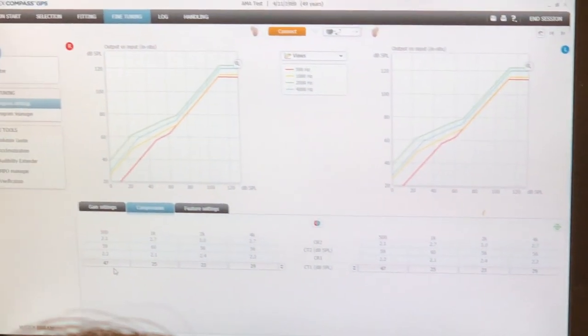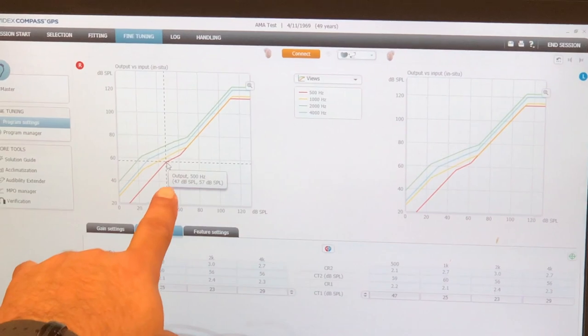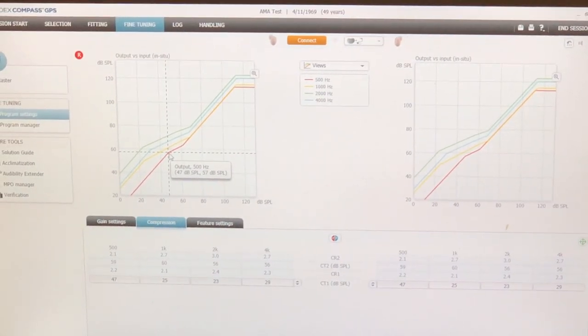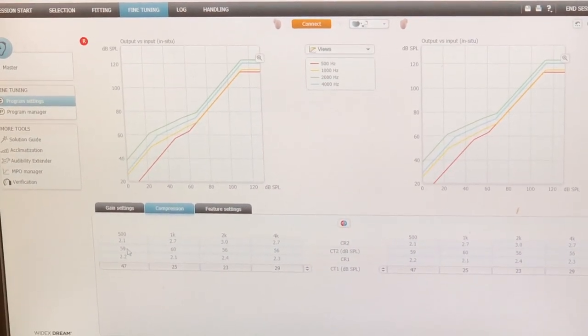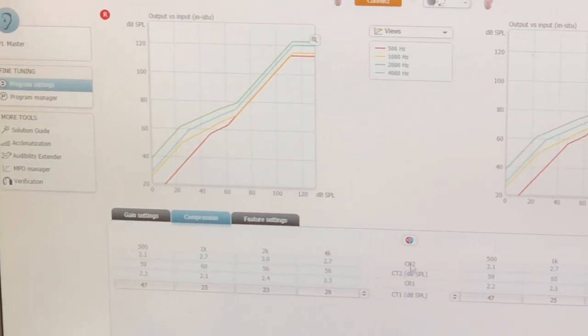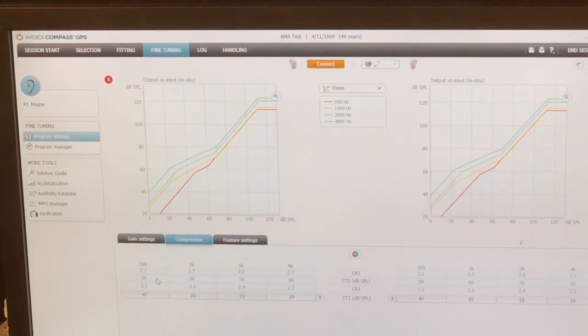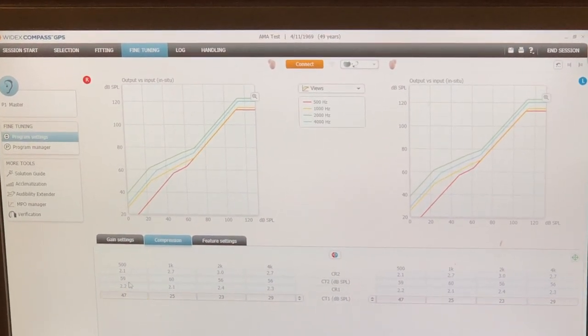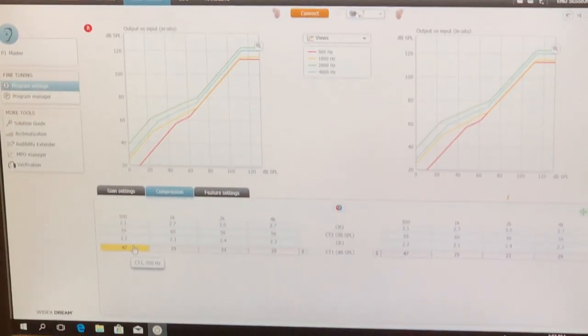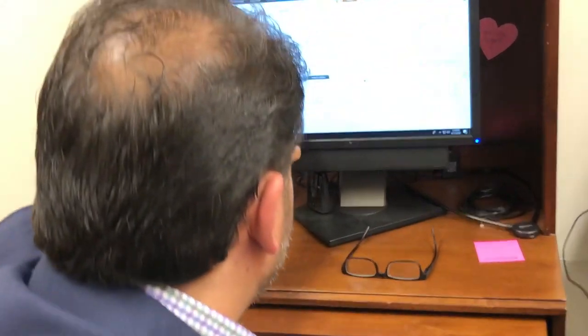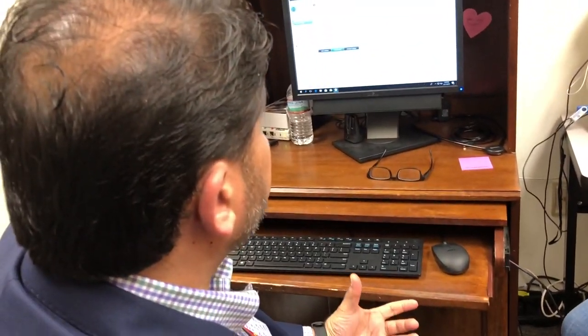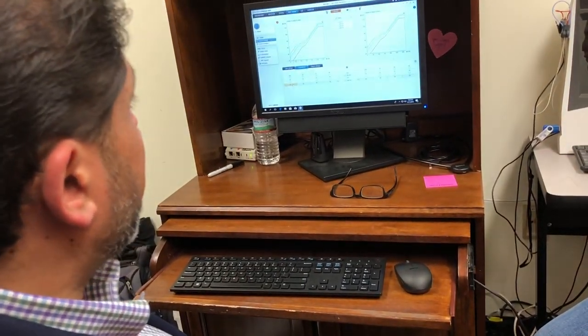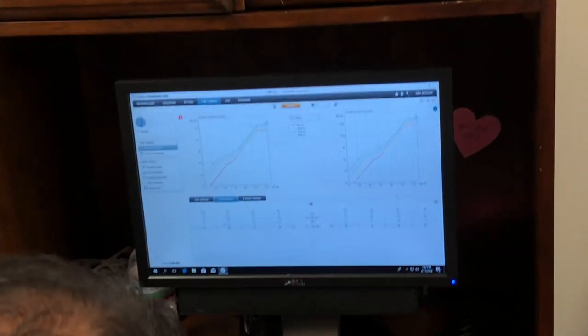So now I've got a second knee point. So as I move this up to 47, which is now somewhere right here, there's 47. Now what happens? Only that little bit is getting compressed. So what do I need to do to it? That's like a really small range of intensities that are getting compressed, right? 12 dB. You'll learn this in amp two. So we'll get into this heavy in amp two. The difference between these two, there's a formula. You calculate that formula and it will tell you how much of a difference you need. I'm guessing off the top of my head, I need about 14, 16 dB, something like that.